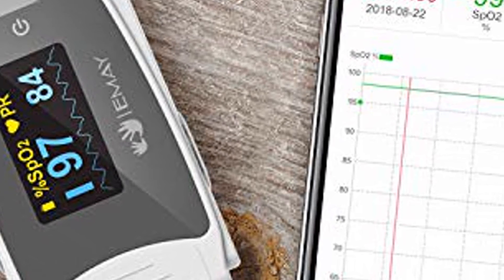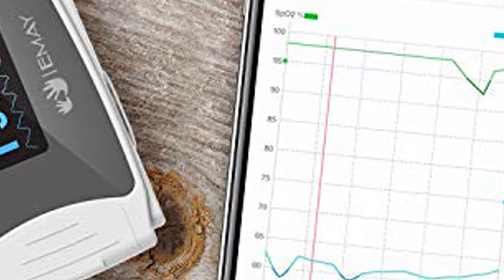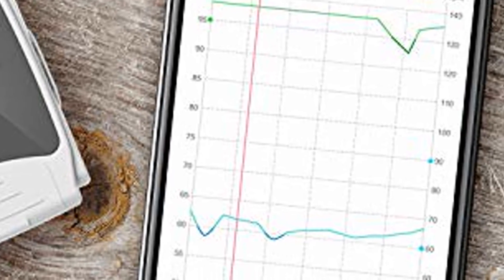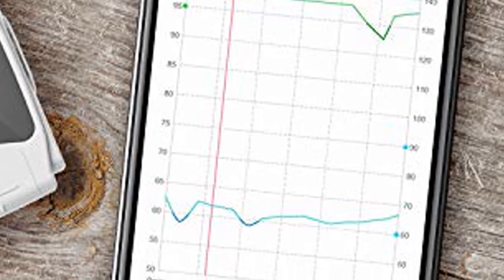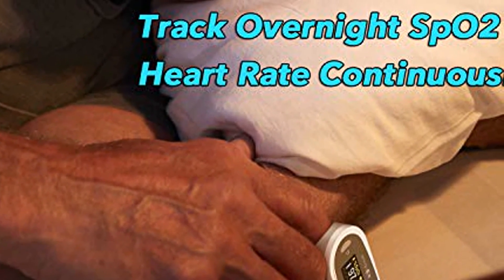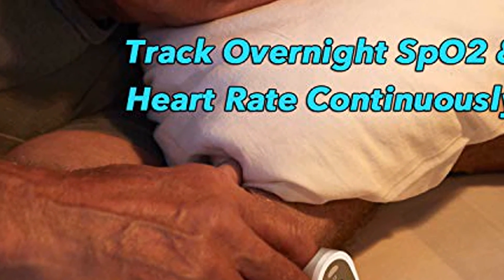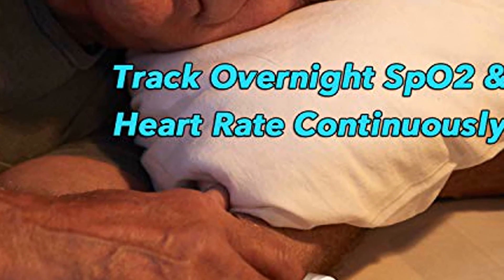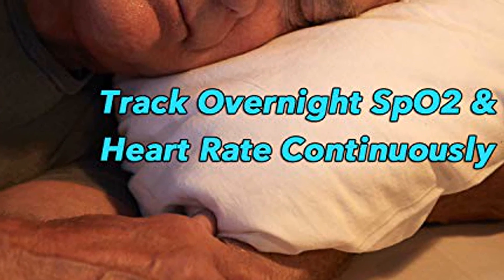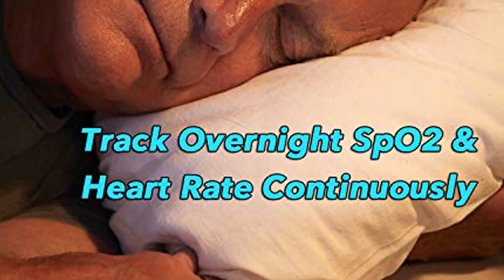Accurate and reliable — accurately display the readings on a large and rotating digital LCD screen, and store your data second by second without interval simultaneously. We're here for you: our California-based team is happy to assist you with whatever questions and support you need.